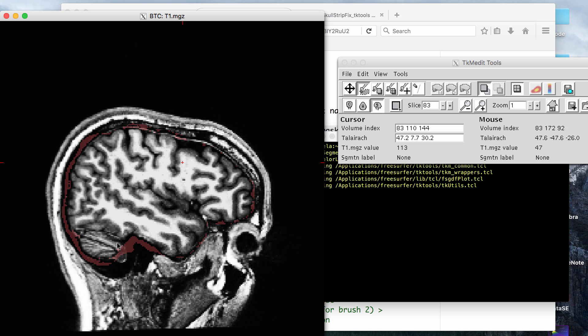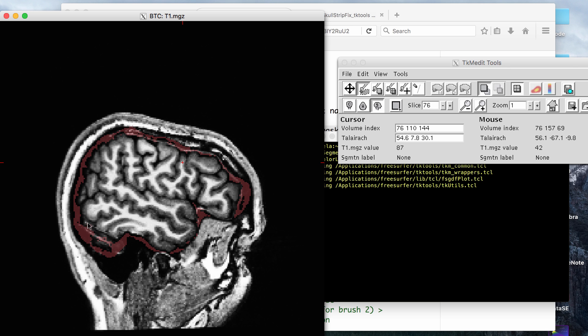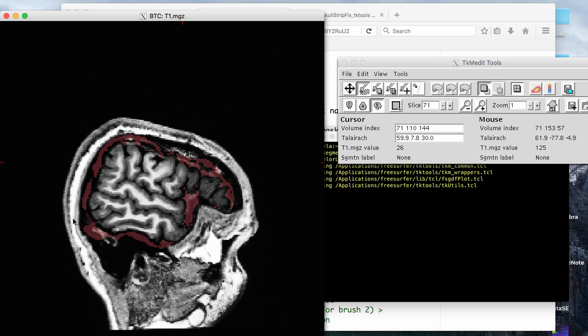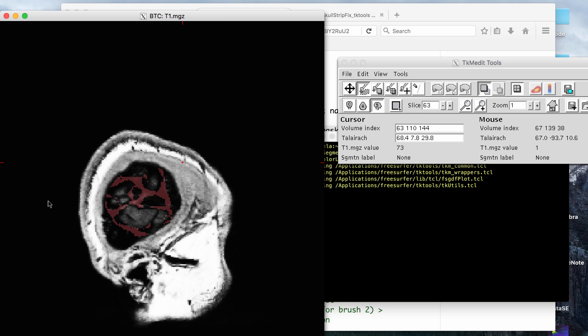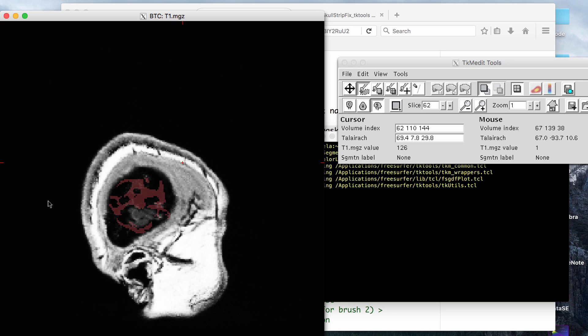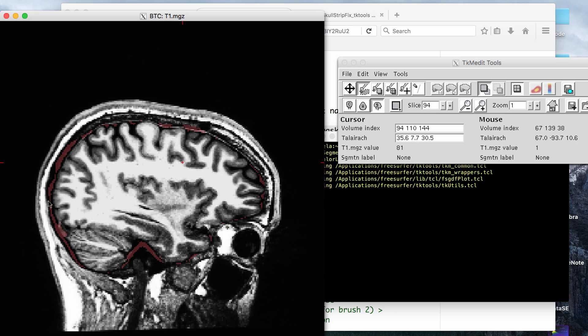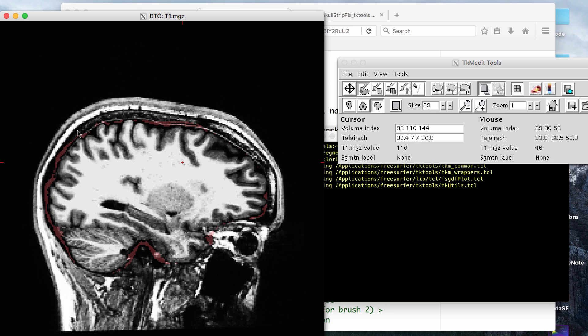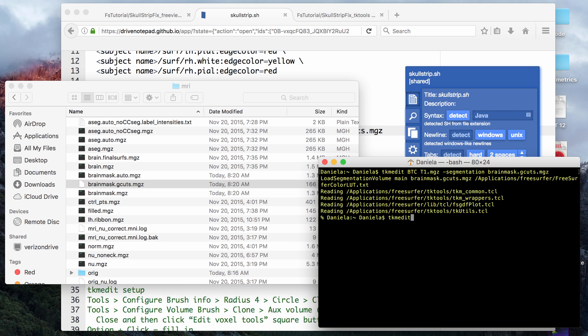So I'm just going to switch to the sagittal view and look at it this way. So down here, for example, it might have cut out a little bit of the cerebellum. It looks like it might have cut out some of the bottom brain here, and maybe some brain here. I'm not sure about that. So that's one way of viewing it, and then you can also just view the brain mask that was altered. So you can do tkmedit, and then brainmask.mgz.